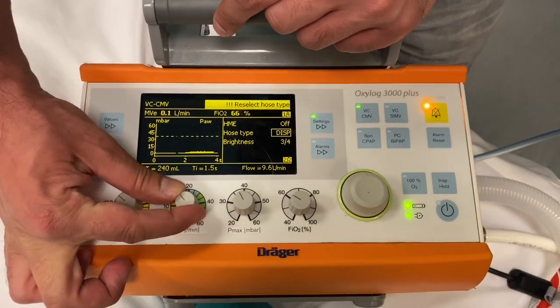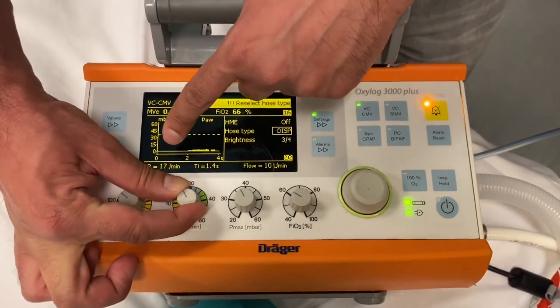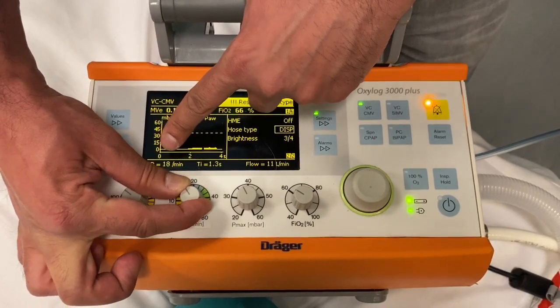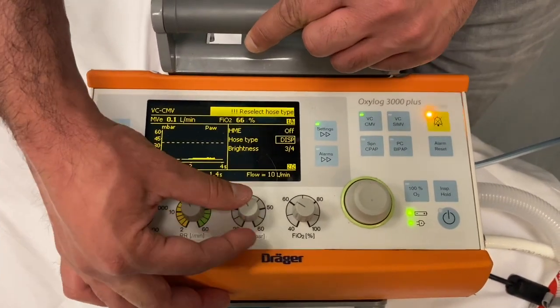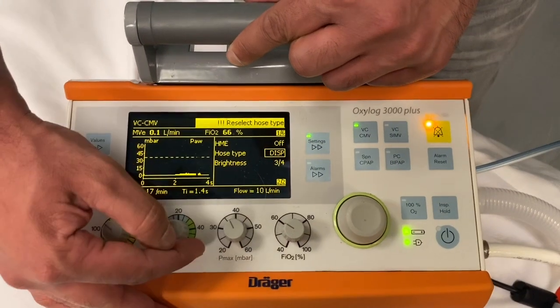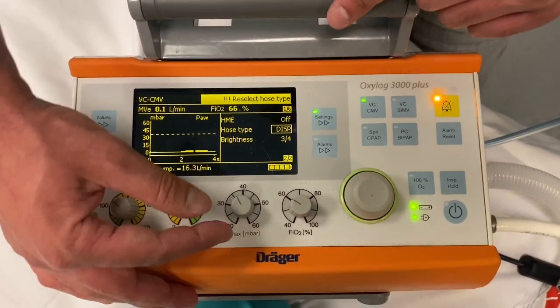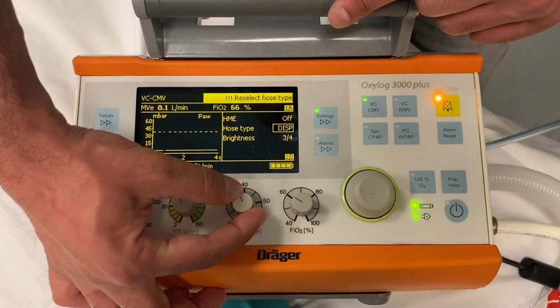To change the respiratory rate you can adjust this knob here, and you will see that the number changes as well. To adjust the maximum amount of pressure that the ventilator can deliver in this mode, you change this knob here.